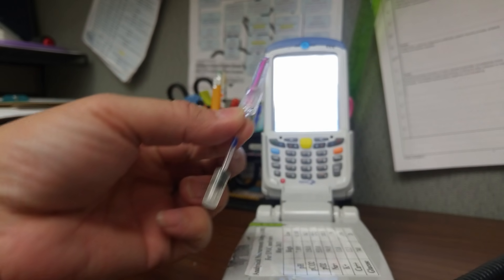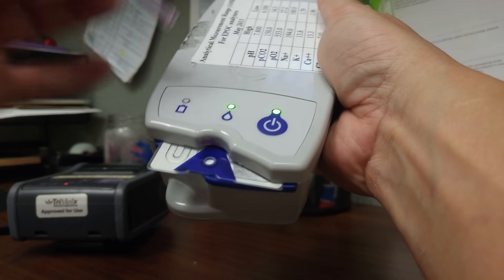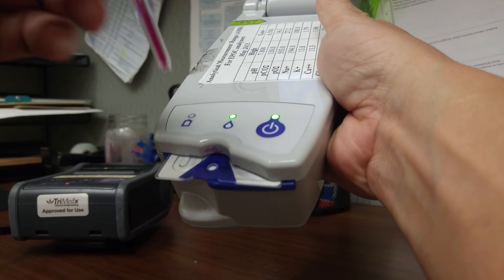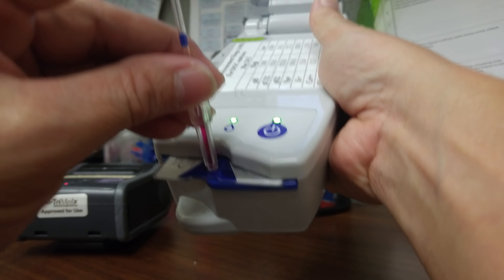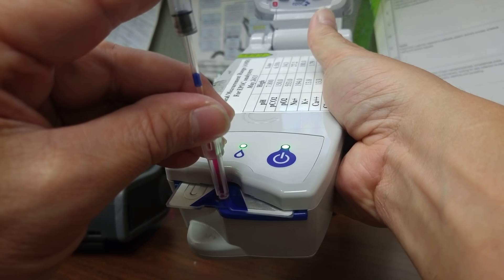This is a plunger, so you put it straight in and you press on the top until you hear a beep. Now it's time to inject the sample. I'm going to use the cap stick.